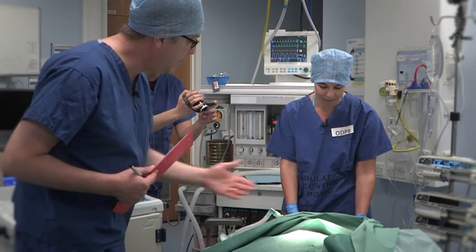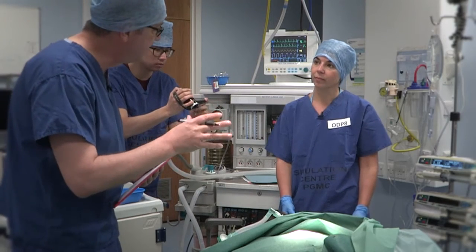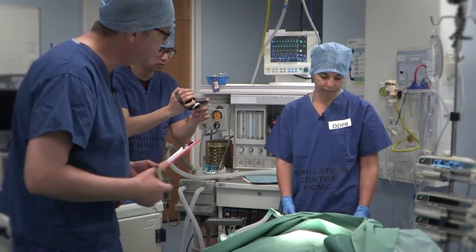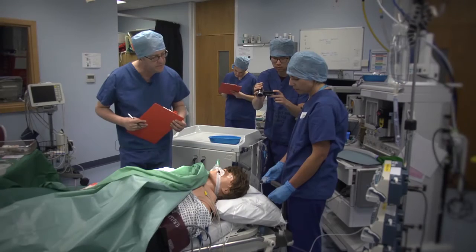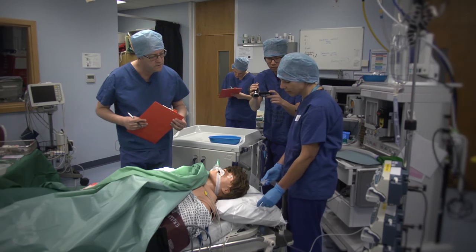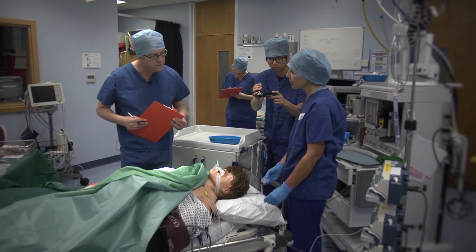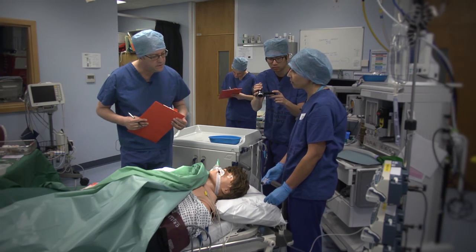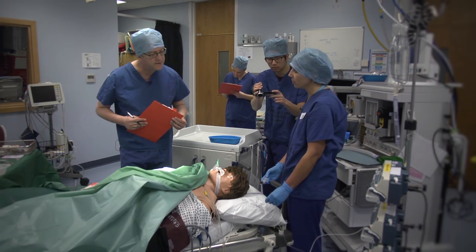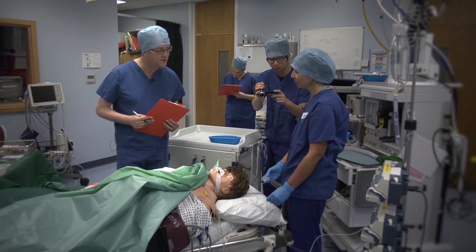The three-way tap then — did you have any difficulties turning it? No, that's absolutely fine. It's got a little bit of resistance, but that's what you would expect. It's not difficult to move. Thank you.